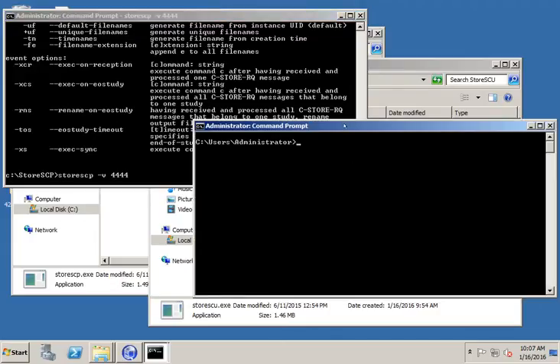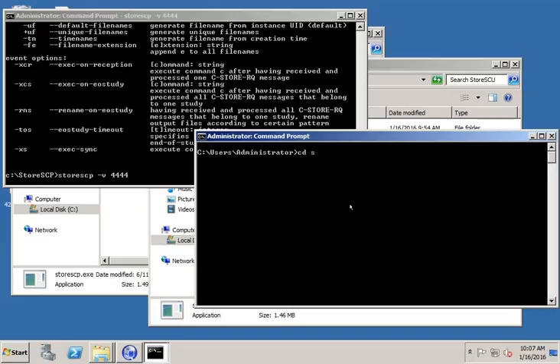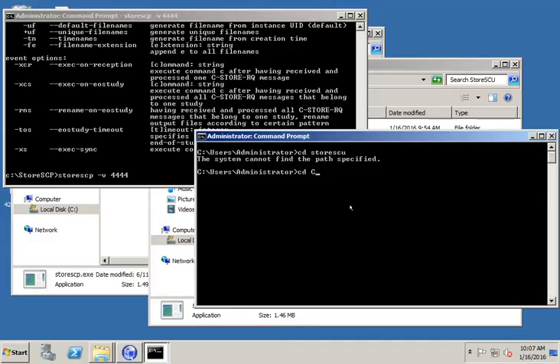Now we're going to set up our client side. This is going to be the service class user or the node that's going to send our DICOM file. So again, I'm going to change directory to storeSCU, the directory I created. I forgot to put C colon backslash.